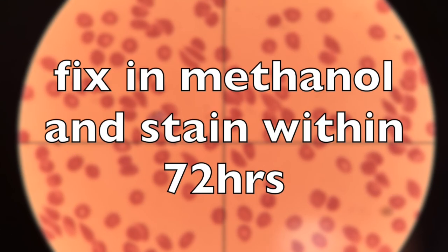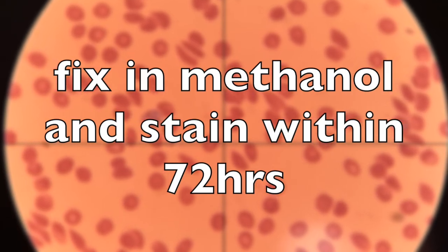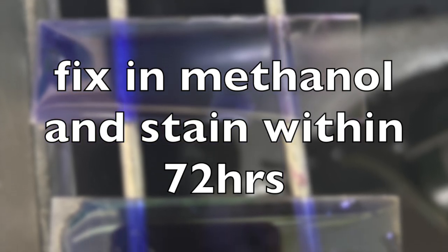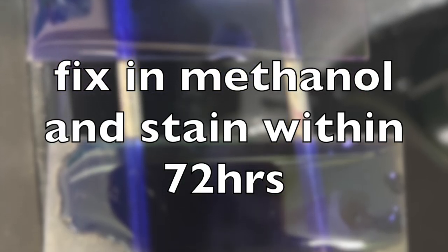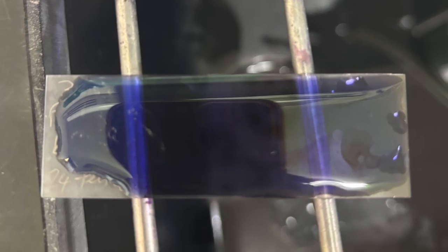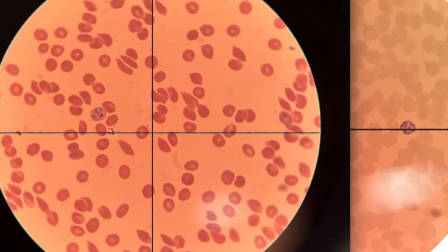The slides, once you've made them, don't have to be read straight away. Once you make your slides, you don't have to stain them straight away. As long as you do it within 72 hours, you will get appropriate details to speciate your parasite or count your parasite if it's a thick smear.